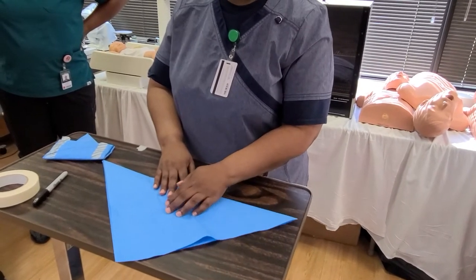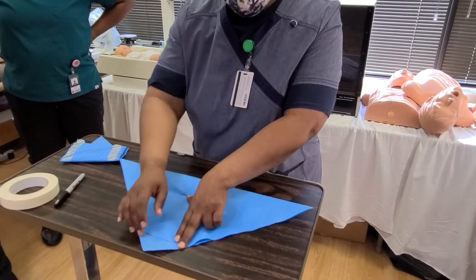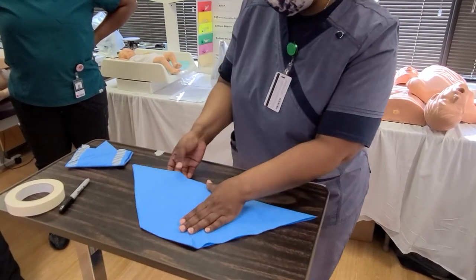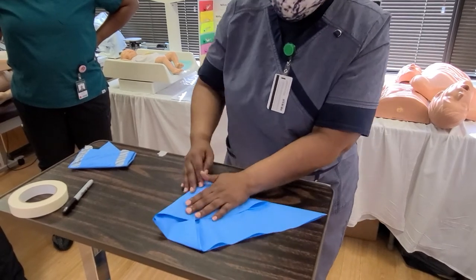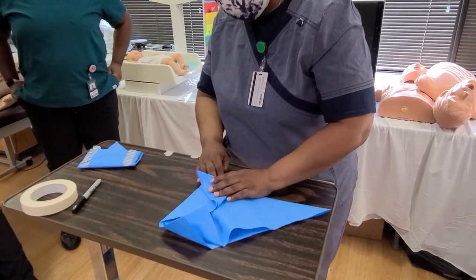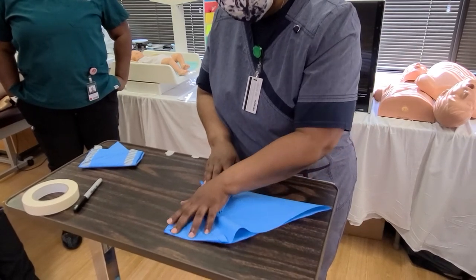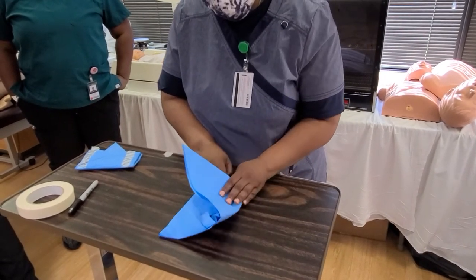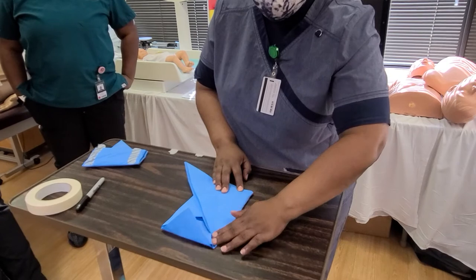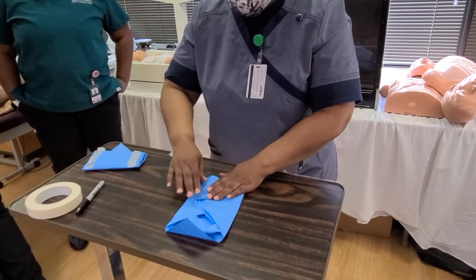The next step is the bend — bend this over and smooth the edge, make another flap, smooth the edge, bend this over. What would happen if my instrument were to puncture my muslin wrap? You'd start all over again. Correct.